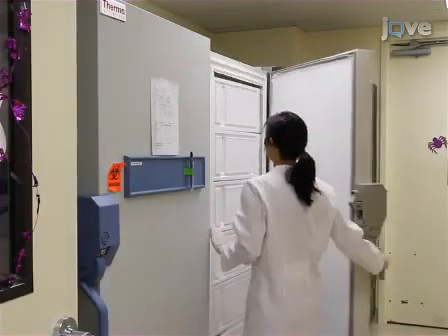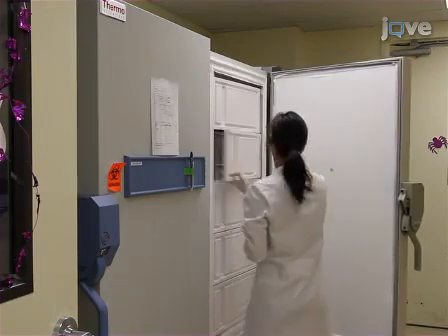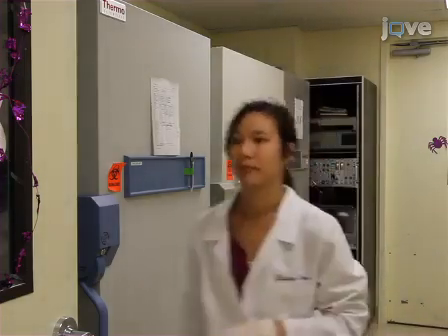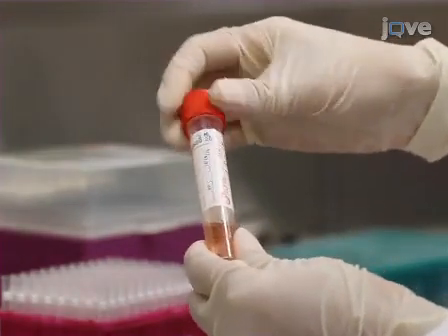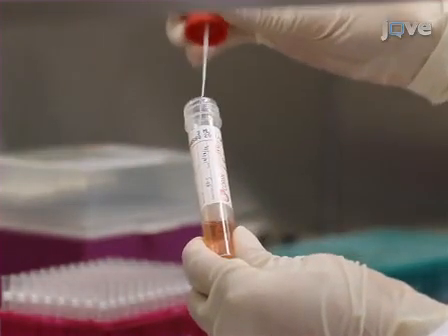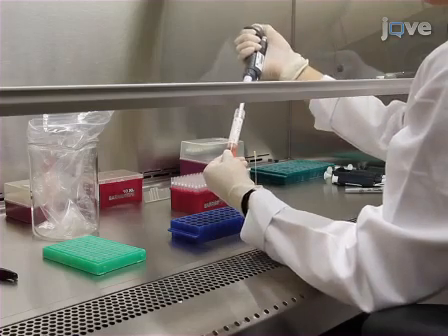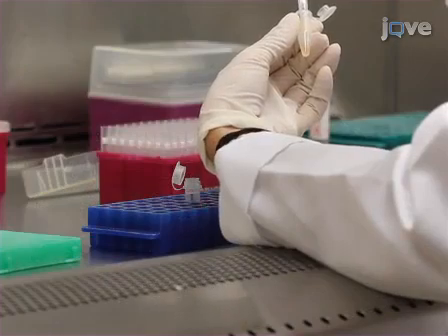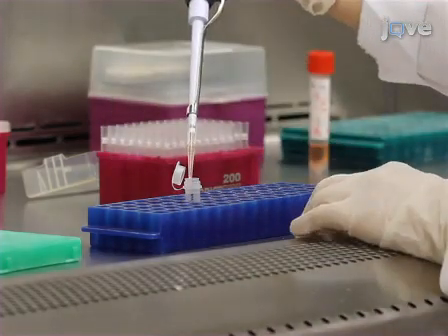Nasopharyngeal swab samples are collected in sterile containers containing viral transport liquid media and stored frozen in a -80°C freezer. In a biosafety hood, allow the tube containing the sample to thaw and briefly stir the swab in the media before disposing of the swab in a biohazardous waste bin. Then, aliquot 200 microliters of the sample into a 1.5 milliliter tube.